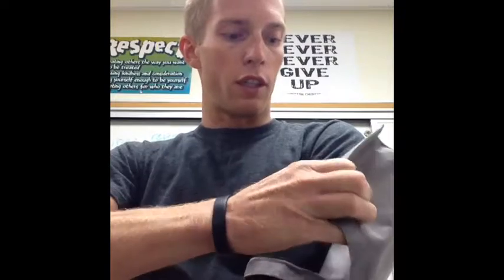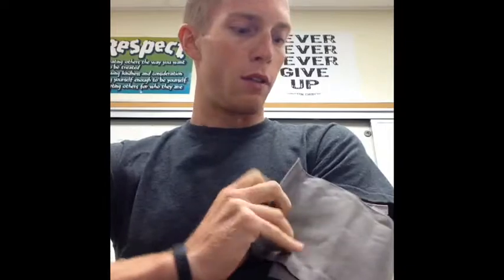Prior to the lab, you're going to have to take several sets of data. The first thing you're going to have to take is the person who's doing the exercises' blood pressure. To do that, you're going to take the blood pressure cuff and put it on snugly. It doesn't need to be super tight, but we don't want it to be loose either. Make sure that the arrow patch is right over their brachial artery, towards the inside of their arm.